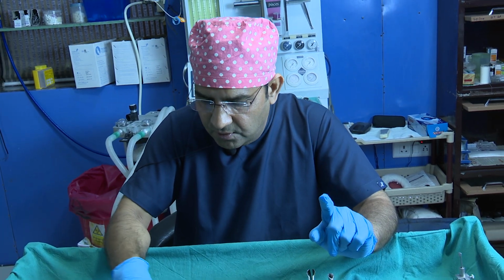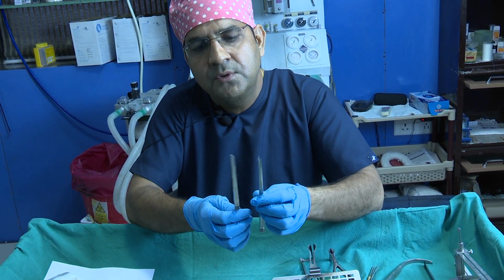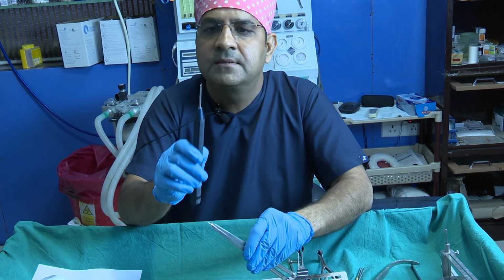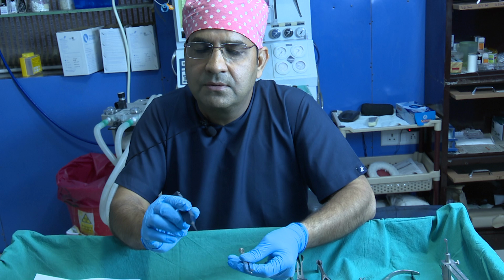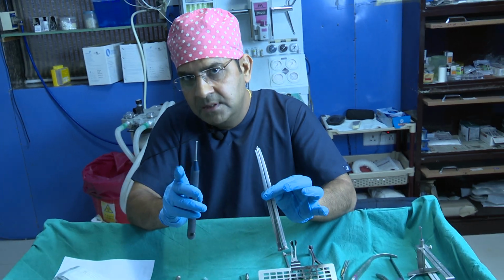These two osteotomes, you purchase the right side and the left side, for both sides. This curved one is good. This is basic, because if you learn your lateral osteotomy from your teacher or professor by the external route, then you can, but you should have both of these.